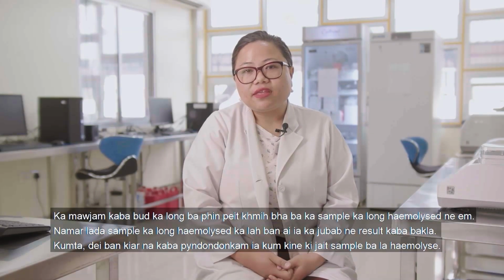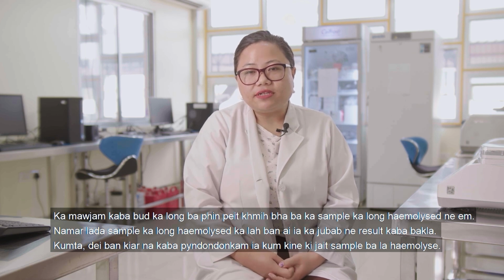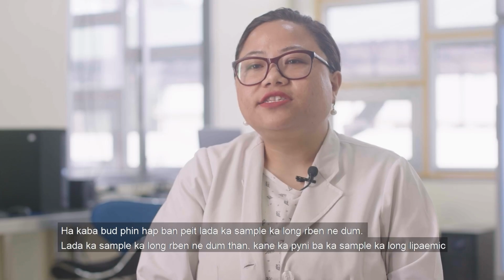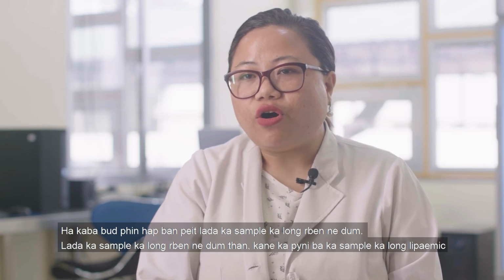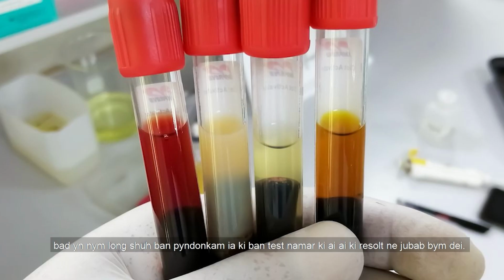The next step, you're going to look if the sample is hemolyzed or not, because hemolyzed samples we avoid as much as possible since they give high false positive results. Next, you're going to look if the sample is turbid or cloudy. If it's too turbid or too cloudy or milky looking, it shows that the sample is lipemic, which cannot be used for such tests because it gives false positive or false negative results.